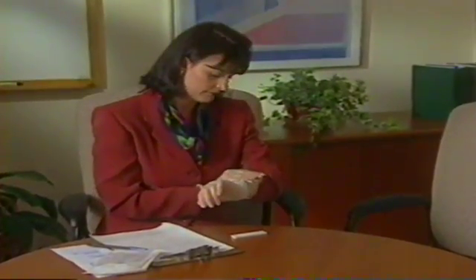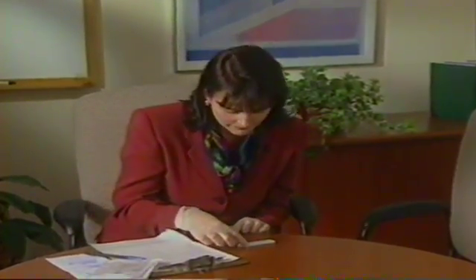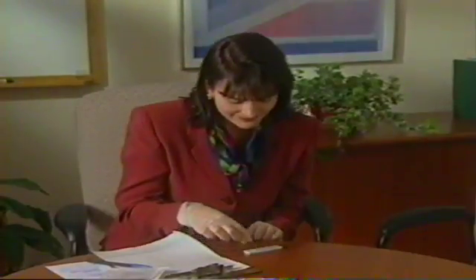It's now time to interpret the results. You will notice a C on the test device. This represents the control line. The test is only valid if a red line appears at the control line position. After you've verified a red line at the control position, you can now review the results. Each drug category has a corresponding line.